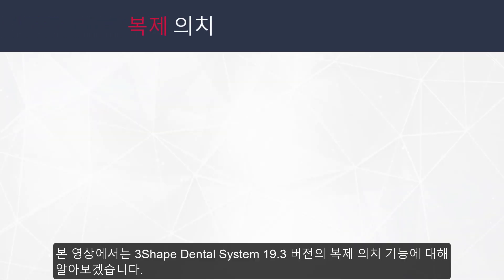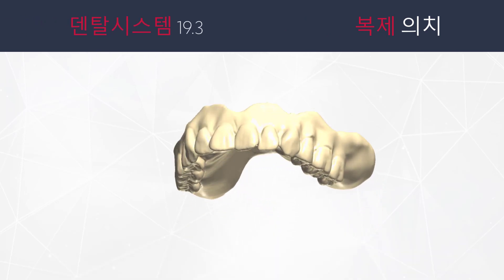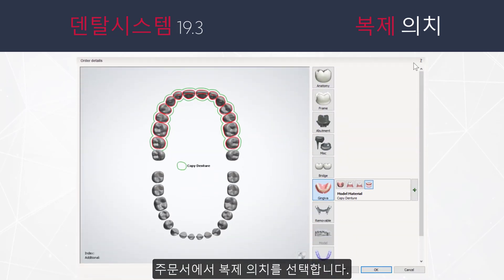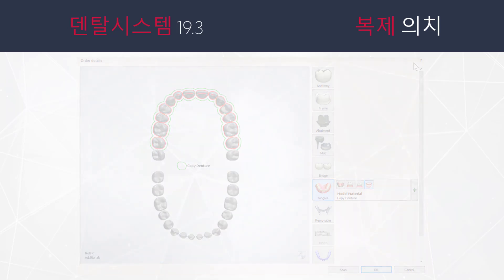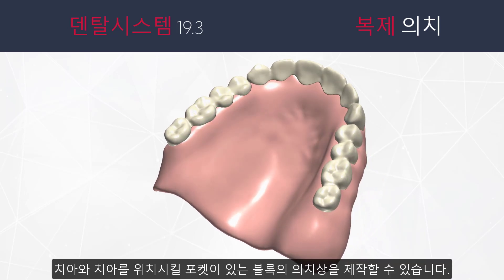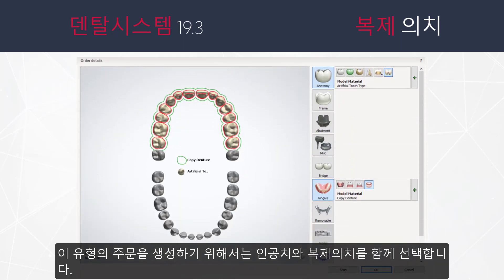In this video we will introduce you to the Copy Denture feature, which is available in 3Shape Dental System 19.3. It will allow you to create an exact copy of the denture as one piece — for this type of order choose 'Copy Denture'. You can also create a final denture designed and produced as two pieces, the base with pockets for teeth and teeth blocks — for this type of order choose 'Copy Denture with Design Teeth'.